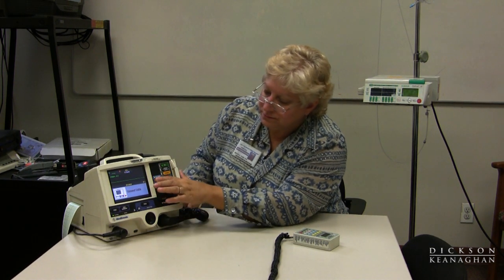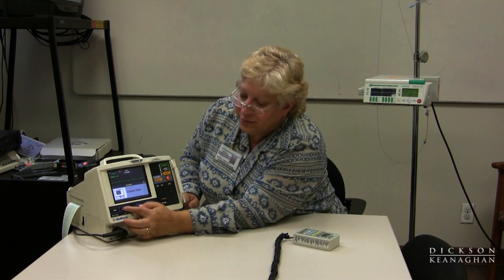There are other settings, like the AED analyze mode. Remember, when you turn on the machine it's in AED mode. I can go into a manual AED mode, but it asks me to connect the cables for the pads — I don't have them connected right now, so it's a pretty smart machine. There are alarm selections available in monitoring mode. You can press print if you need an EKG strip, or press code summary to print all information regarding events that occurred for the patient. Once you shut off the machine, it does not save that information, so keep the machine running until you get a readout and paste it into the patient's chart — it's very accurate with the time.